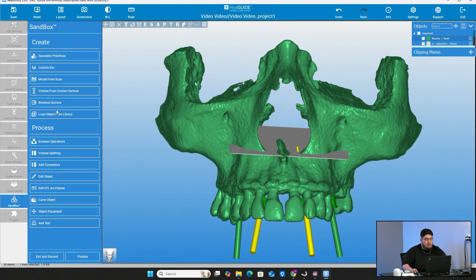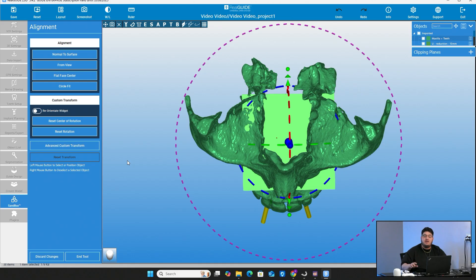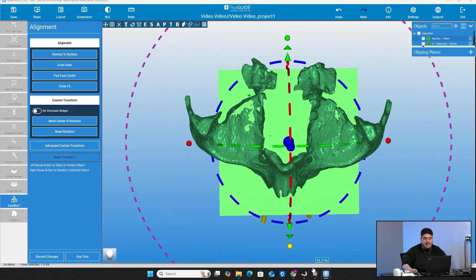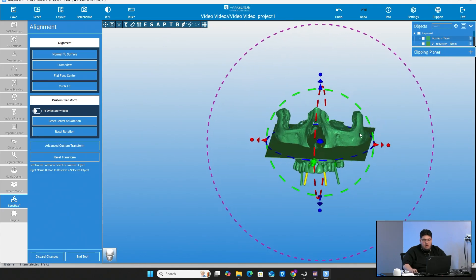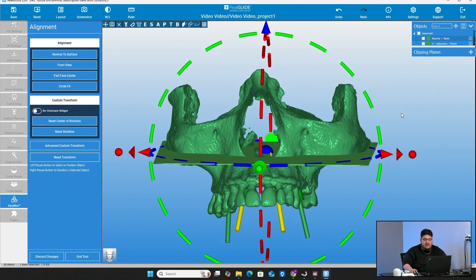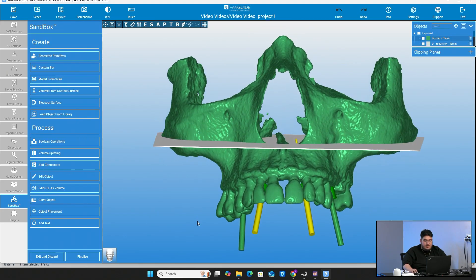Before moving it, go to object placement — the second to last option. Select the object you want to move and go to custom transform. This is where you can move it manually. What I like to do first is make it as large as possible — at least as large as the scan I'm going to be editing — because you want to make sure that when you make a cut, it's clean all the way through and doesn't leave any pieces of material attached to the object you're keeping or the object you're subtracting.